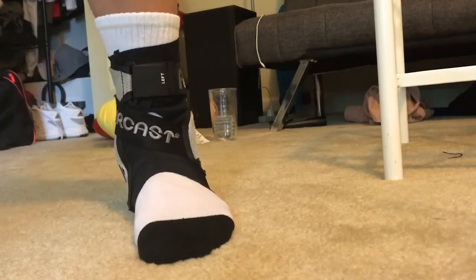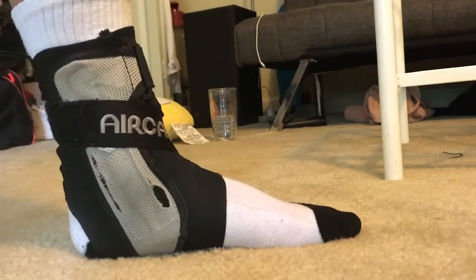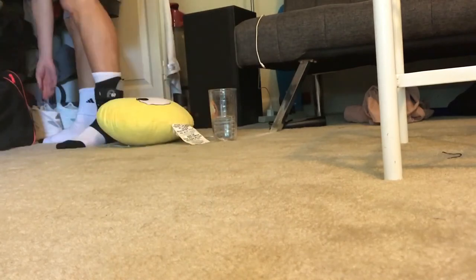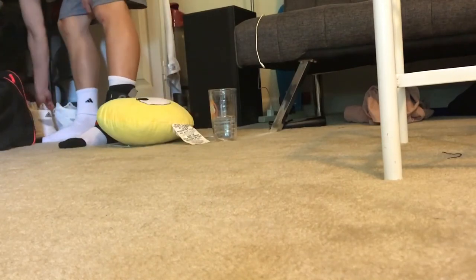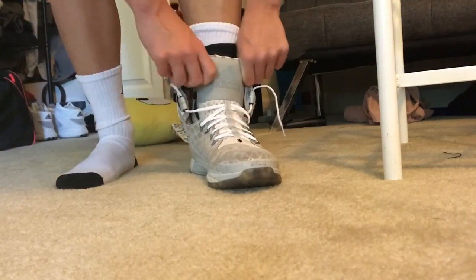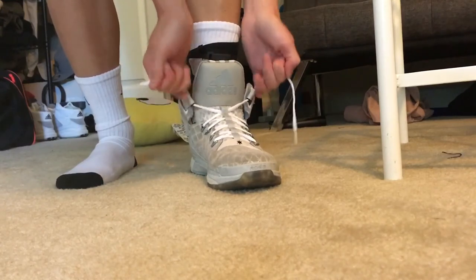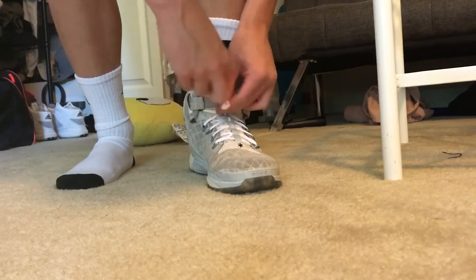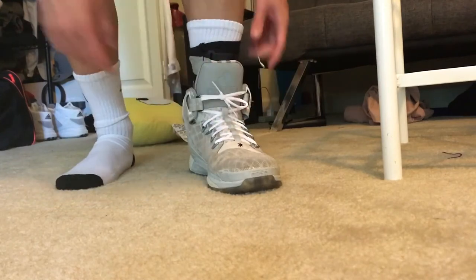When it's on your feet, it's not too bulky or anything. I mean, people can tell you have an ankle brace — there are slimmer options — but it's not too bulky. When I was playing I didn't forget it was on my feet, obviously because of the rigidness, but it was comfortable. I never felt any kind of pain or discomfort, and it really kept your ankle in place. I was extremely impressed with this ankle brace.